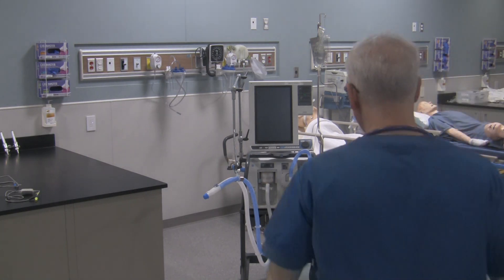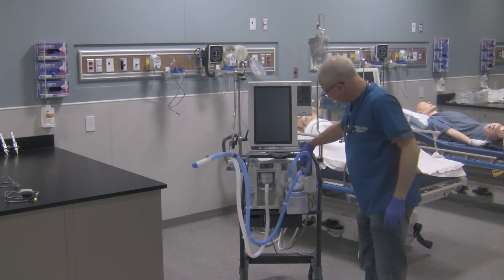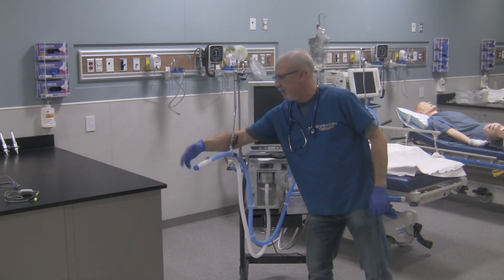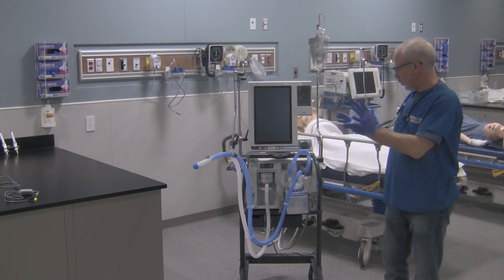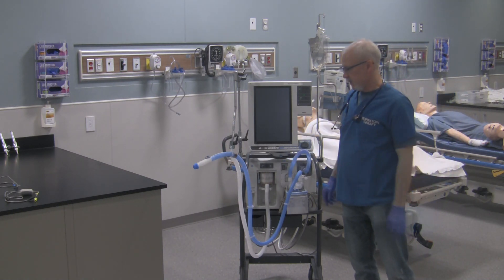The circuit's hanging on here pretty clean. I can trace the gas flow into the humidifier, trace it to the patient end capped over here, and trace the flow back to the ventilator. So it's all put on properly.